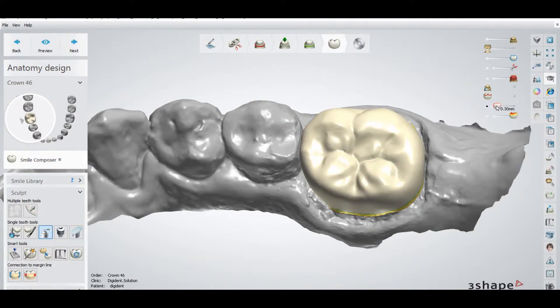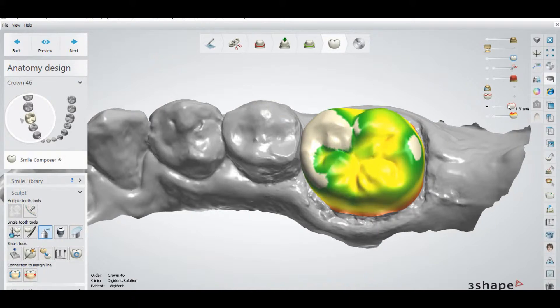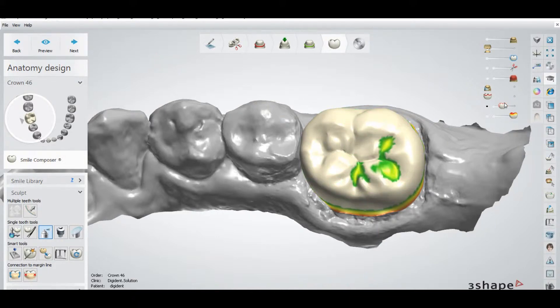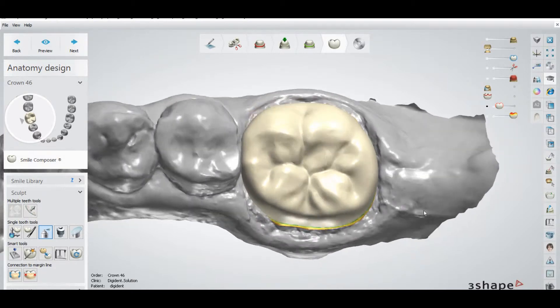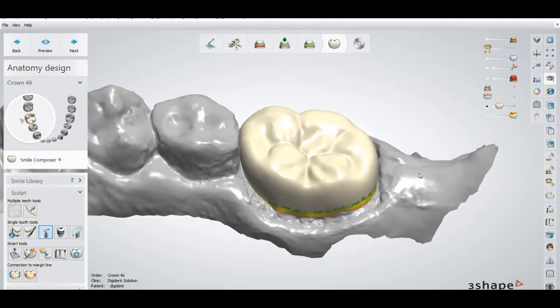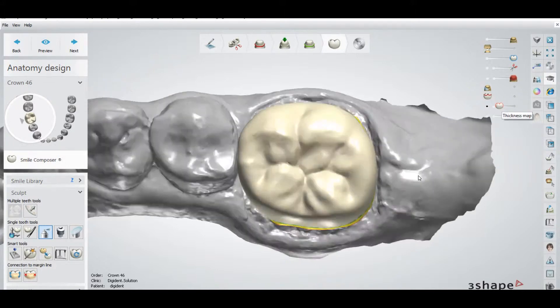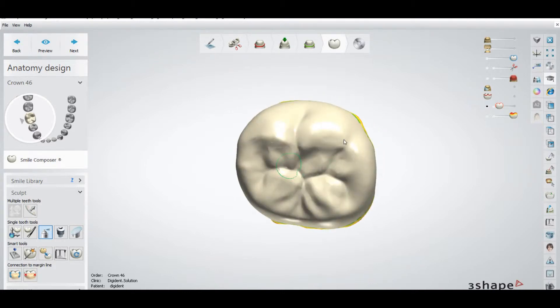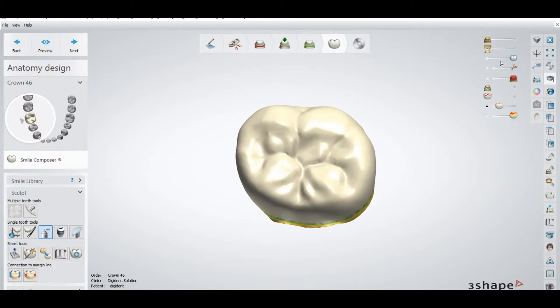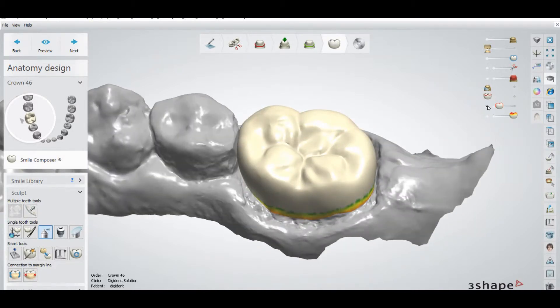You can check and change the settings here. From 0 to 2mm you can set your limit — how much you want as the minimum thickness. This is the option where you can set your minimum thickness from restoration to restoration. Just scroll it and it will show you — you can check your restoration and there are no more areas with color meaning minimum thickness is more than 0.52mm.